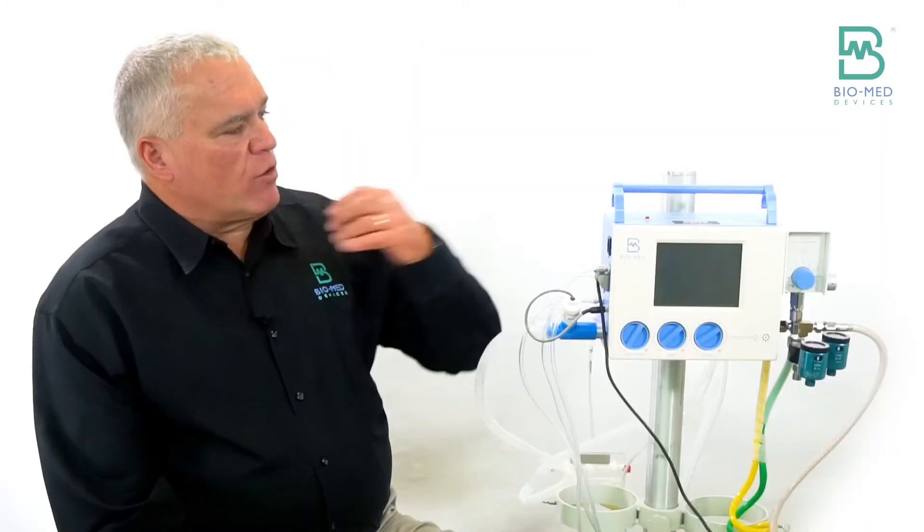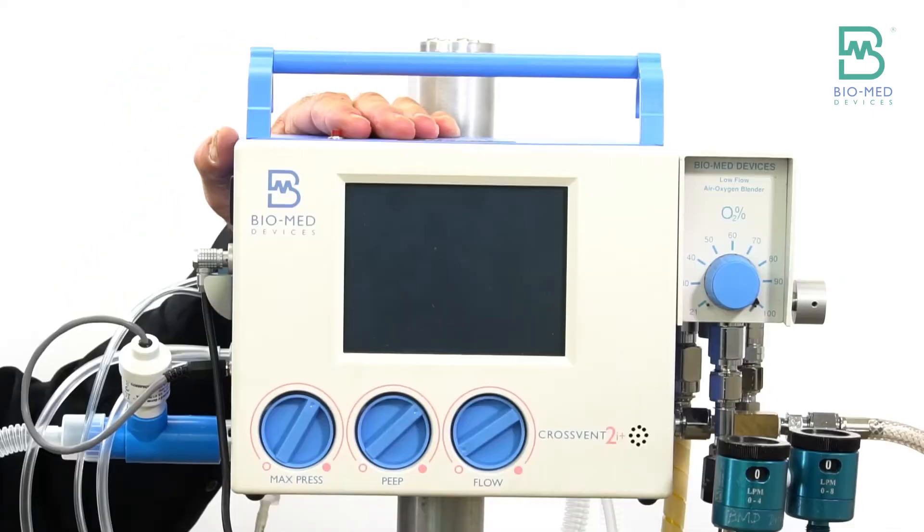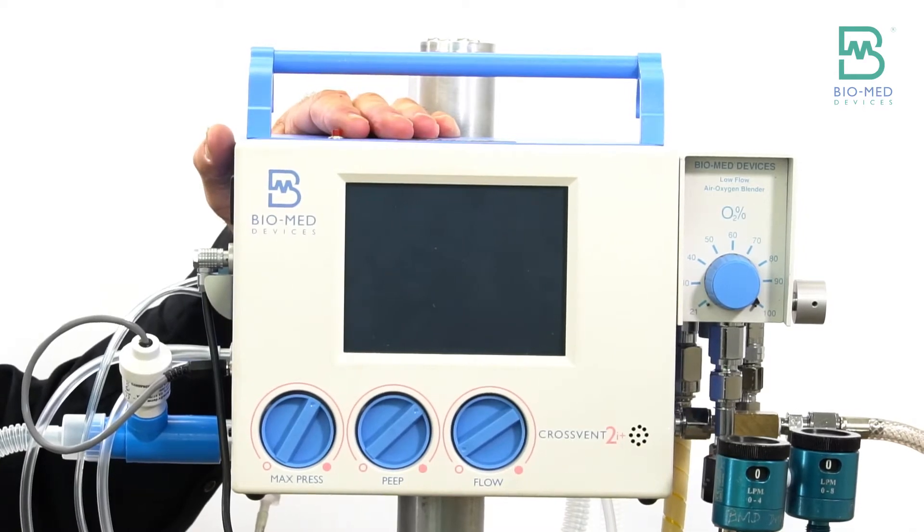Others will, level one, level two nurseries, might put this on a stand and use it as their temporary vent until transport comes.